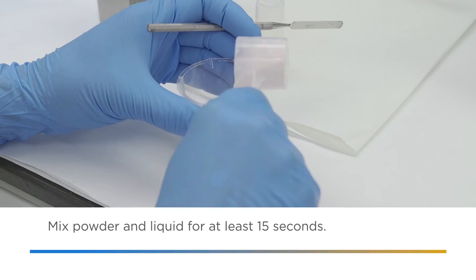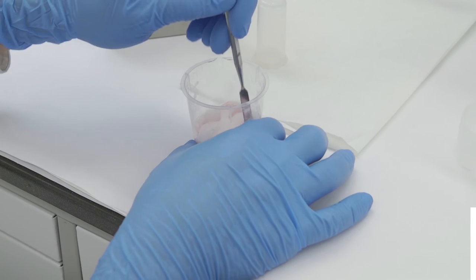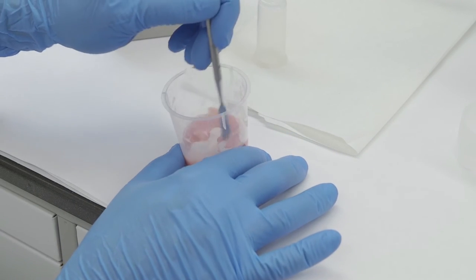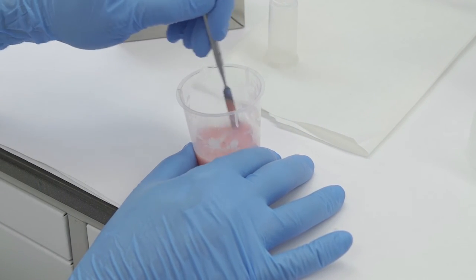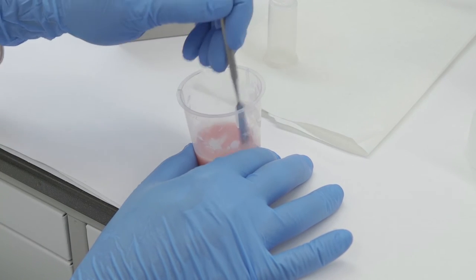Finally, add the powder to the liquid and mix thoroughly for a minimum of 15 seconds to completely wet out the powder. Mix well so as to avoid white areas or spots in the denture. Also, be careful to avoid trapping any air bubbles.